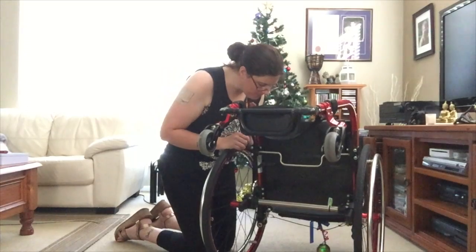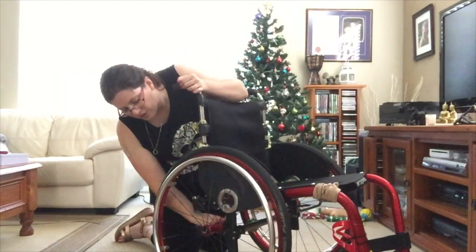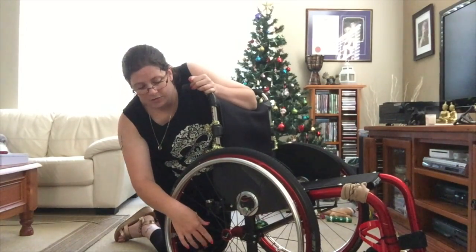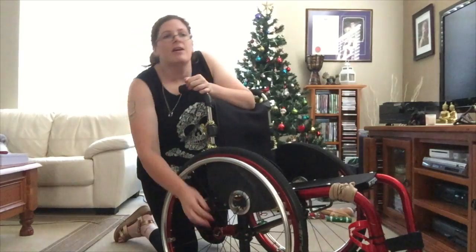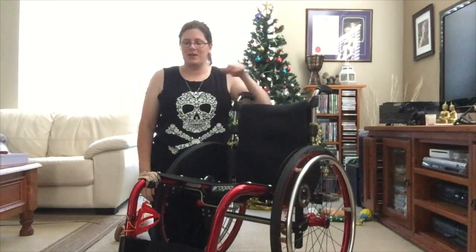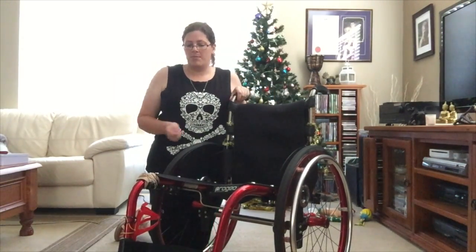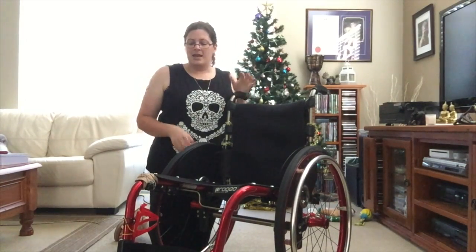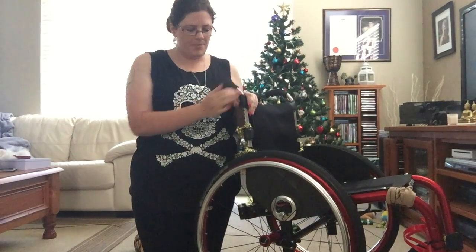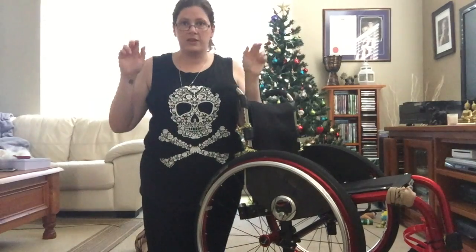As far as forwards and backwards goes, it's basically along the side here. You can have it back as a really safe setting, or you can have it forward as a really active setting. I've actually sat in a chair with an active setting and every time I pushed, my front wheels were coming off the ground — it scared me the first time. Mine's pretty much perfect: if I push hard it'll come up, but if I just push normally it's generally pretty good. It's an individual thing. Basically, adjusting where the centre hub sits — forwards or backwards, up or down — is your centre of gravity.